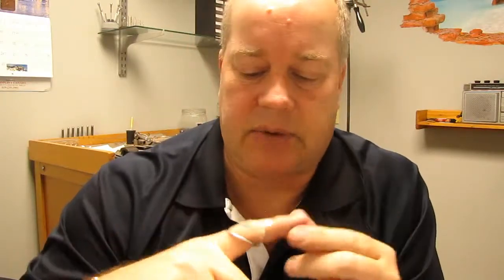The benefits of wearing a splint like this: it stabilizes the IP joint, and the laxity starts to go away because we're stopping the hypermobility and hyperextension. It stops joint fatigue. I know it feels good talking to a lot of EDSers — extending your fingers to stretch them out — but it's really stressful on those joints. By stabilizing the finger in a slightly flexed position, we stop that joint fatigue from happening.